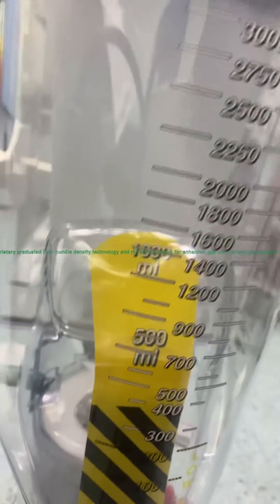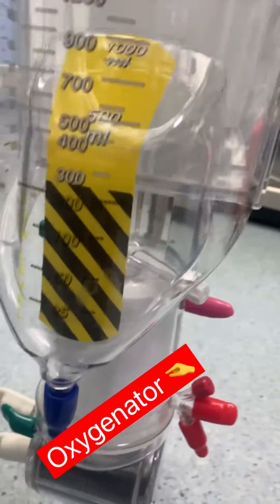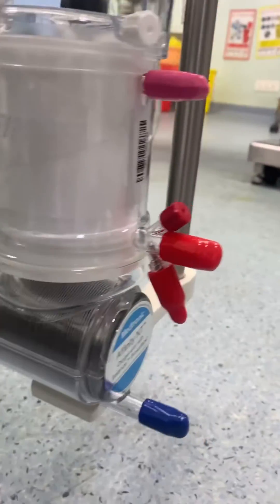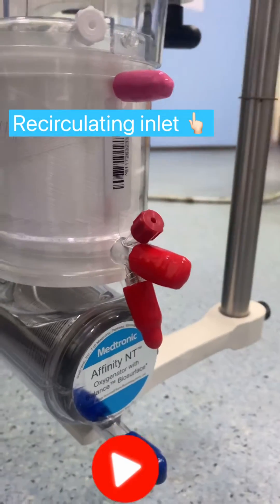Proprietary graduated fiber bundle density technology and radial flow design for enhanced gas transfer and low-pressure drops.